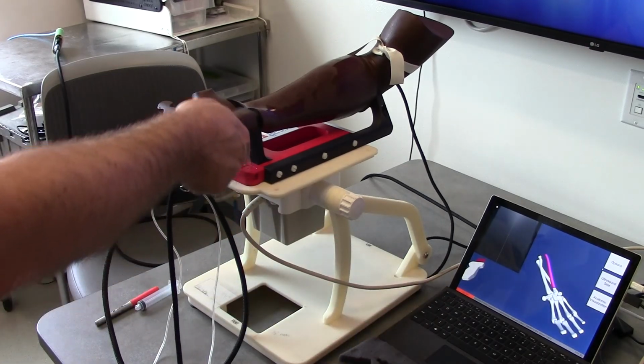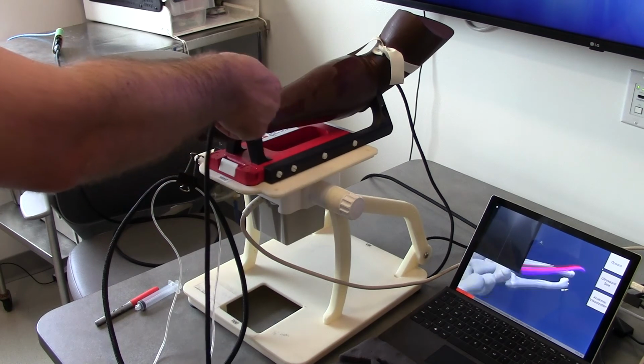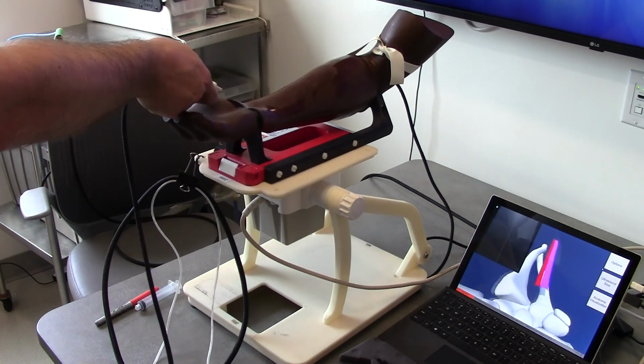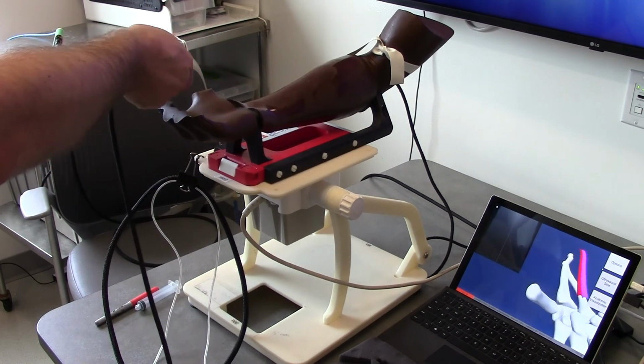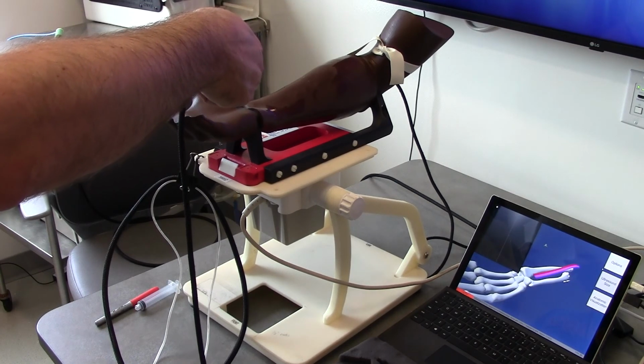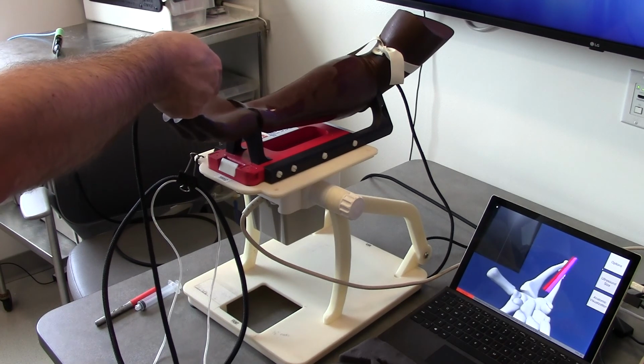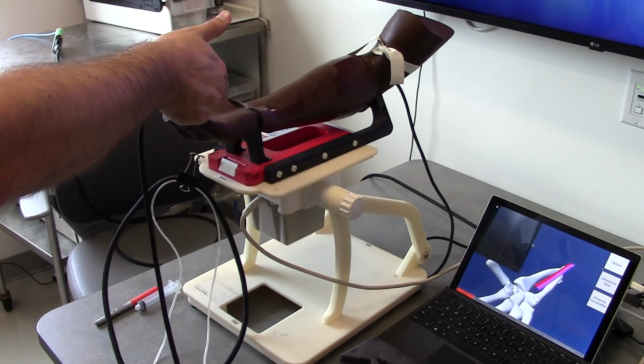The viewpoint of the virtual 3D model can be controlled with a preset of the virtual camera position, or by using the Virtual Camera Controller, also called the Tangible User Interface. Hold the button on the virtual camera controller and move it around the physical model. The virtual camera viewpoint will follow the controller and move around the virtual 3D model. Release the button to freeze the virtual camera position.